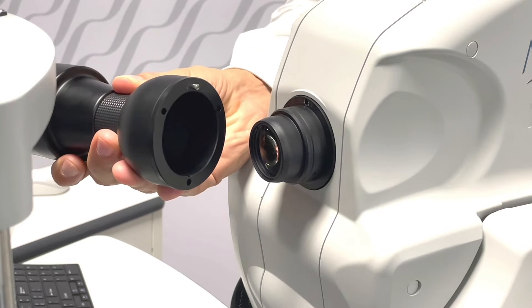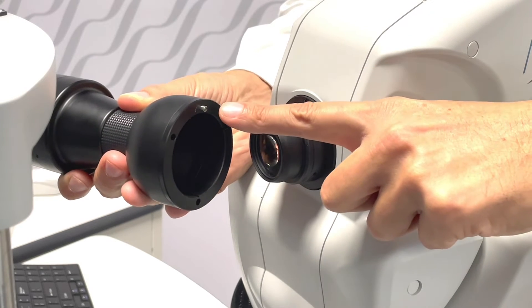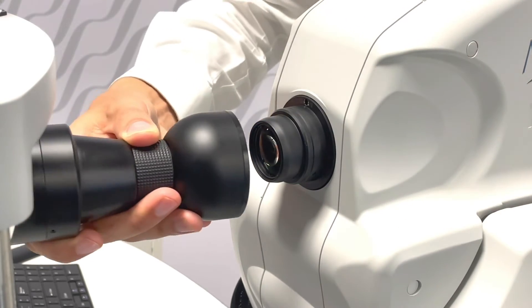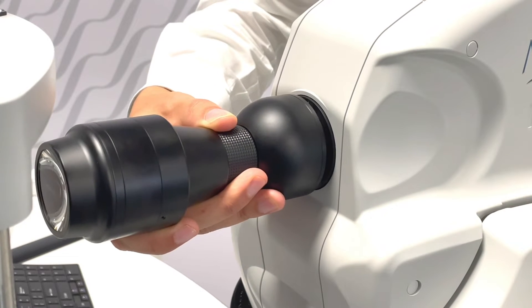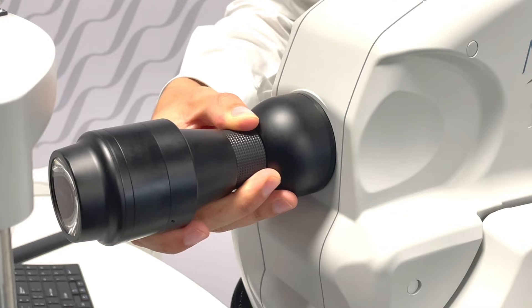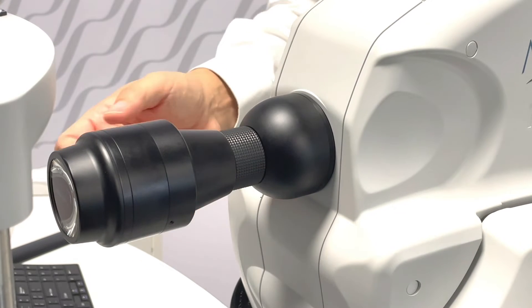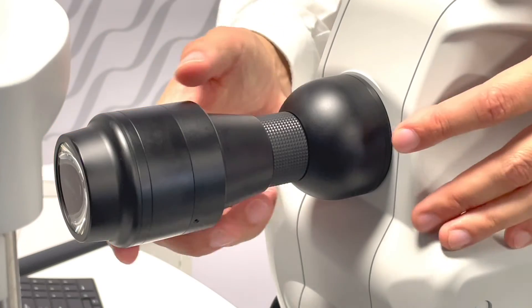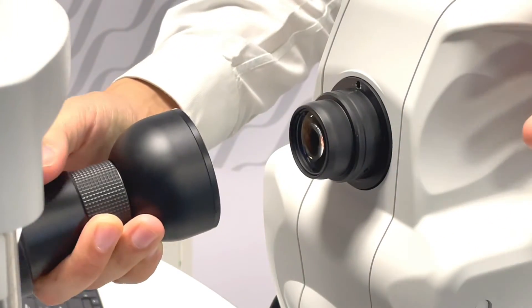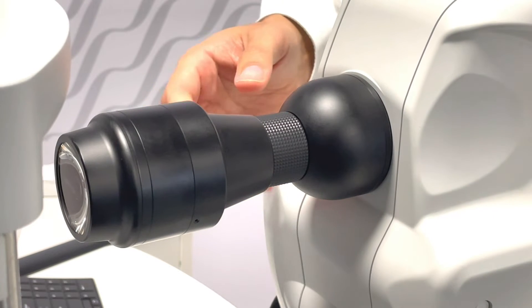The ultra-wide field lens is extremely simple to use. Just pay attention to the notch, that has to be at 12 o'clock. Then softly position the lens in front of the optical head until the magnetic socket will help replace the lens in proper position. To remove the lens, just pull it off softly. The lens can be put on and off at any time, even during an ongoing examination.